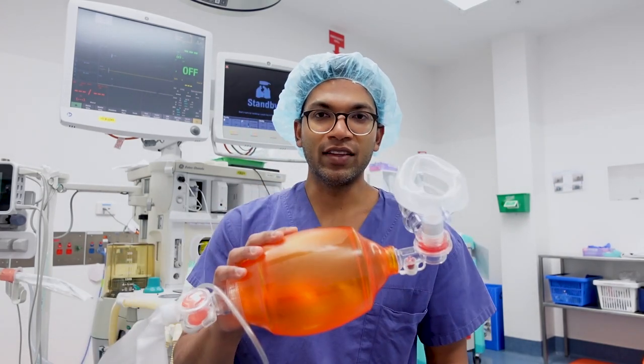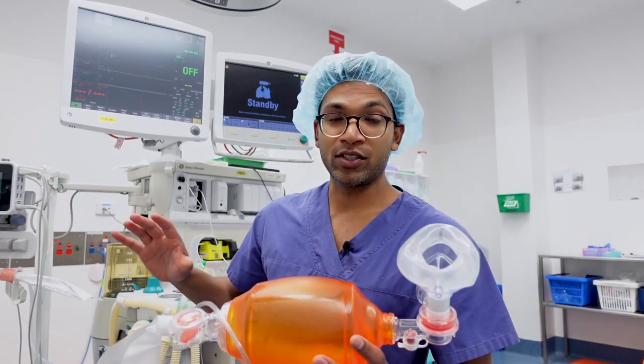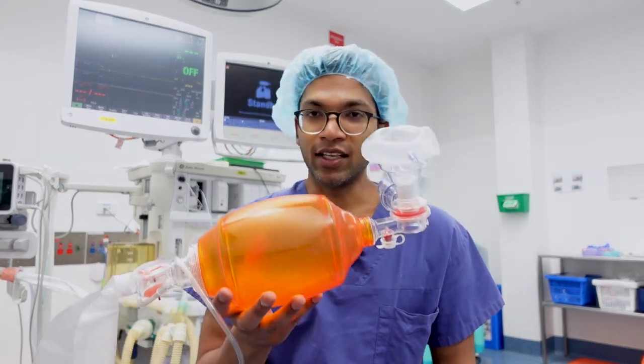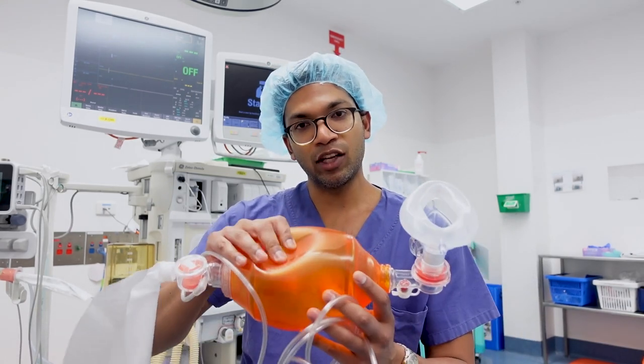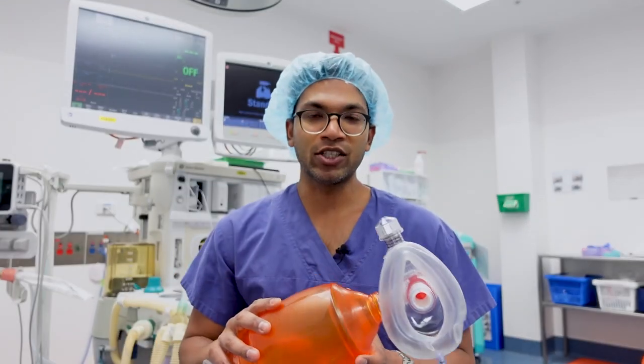So that's all I need to talk about. Every anesthetic machine should have one of these — it's such a great device because it simplifies and solves a lot of problems you might not be able to solve immediately by troubleshooting an anesthetic machine. Any problems with the anesthetic machine, you can attach the circuit, the endotracheal tube, or just put the face mask on the patient to ventilate them. Because it doesn't require an oxygen source necessarily and is self-inflating, you can apply positive pressure in any situation — out in the field, in the wards, emergency, ICU, or even anesthetics.